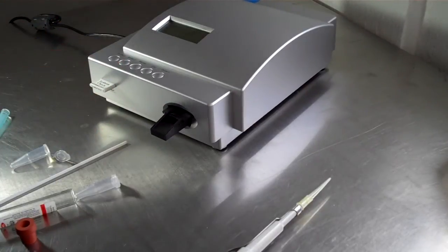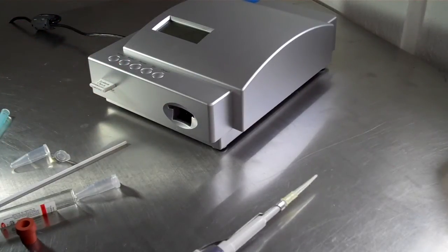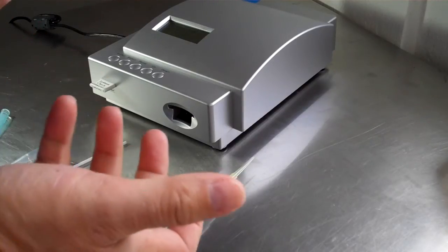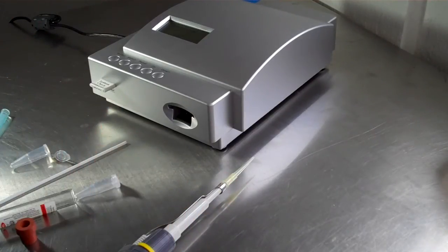You press select, and the machine will read your progesterone and give you the results in seconds. So you can't get any easier than that.